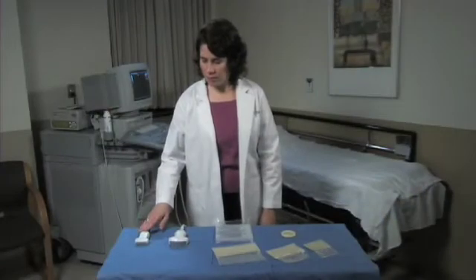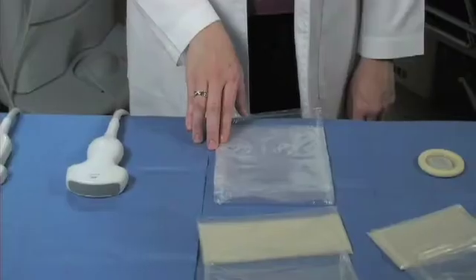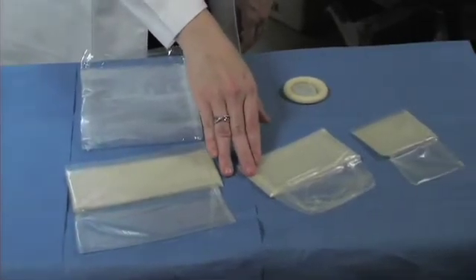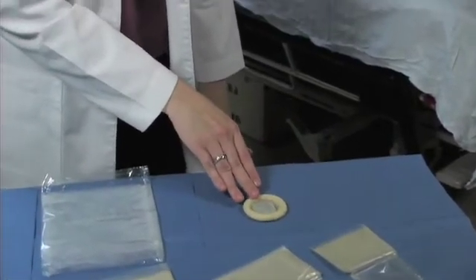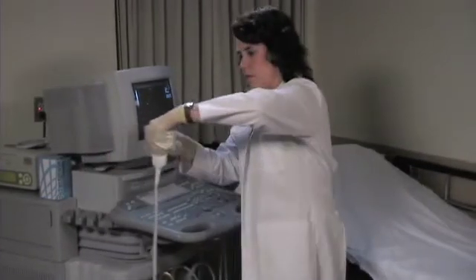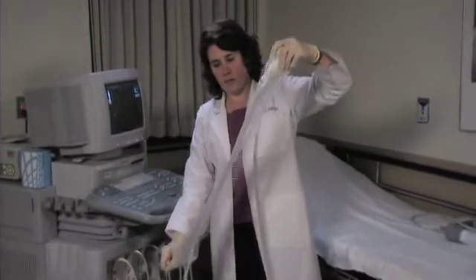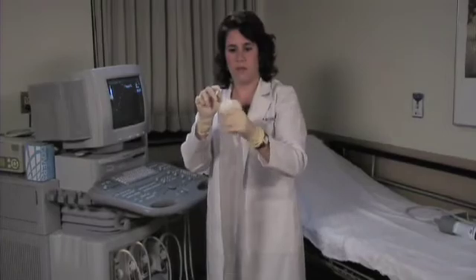General purpose transducer covers are available in many materials, widths, and lengths. Specialized folding techniques of the covers allow for either a single person or dual person approach to application using proper sterile technique. Covers designed for use in a sterile environment usually provide a long telescoping extension that will cover the cord of the transducer extending the sterile field.